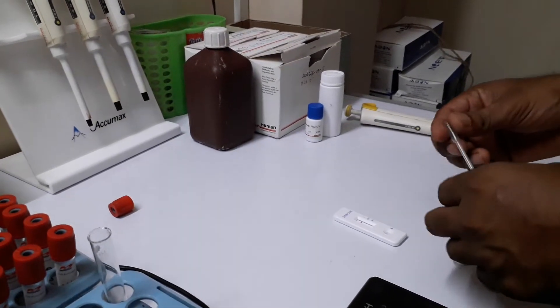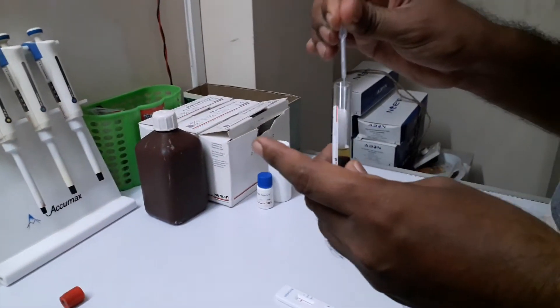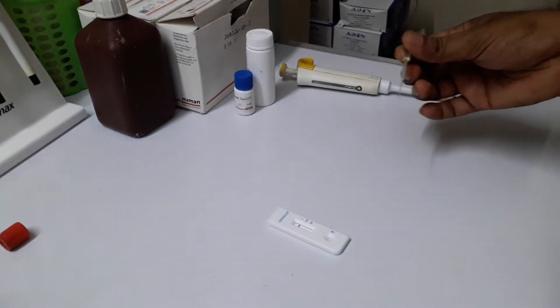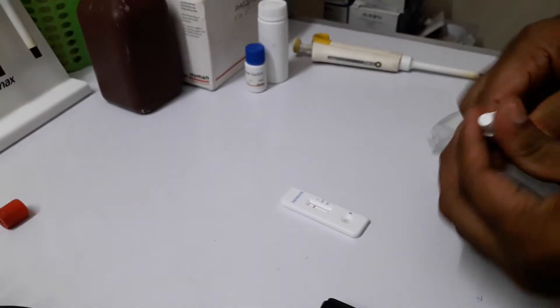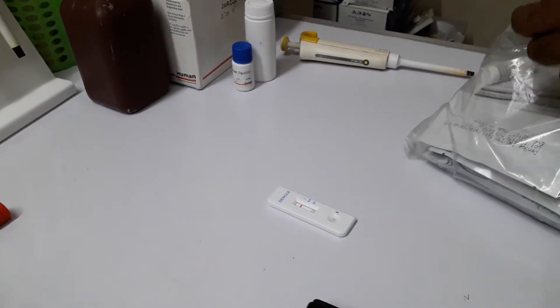Then we start doing our fresh serum. Let's start — I am going to add one drop and mix it with a buffer, two drop buffers, then add one drop and mix it with a buffer.